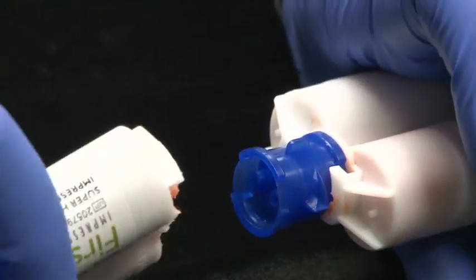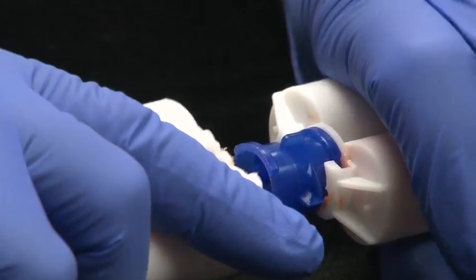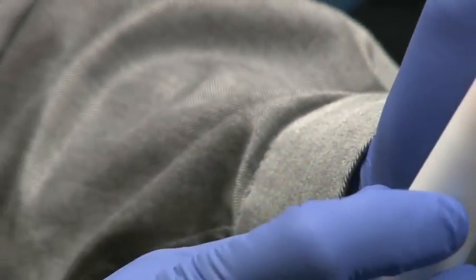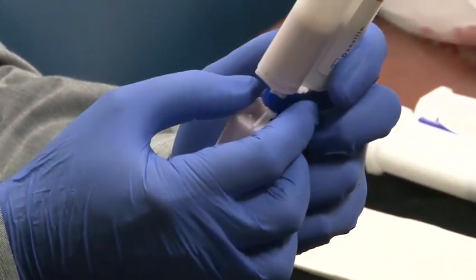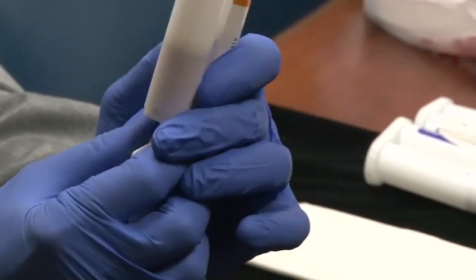We do the same thing, line up orange with orange and just go straight on. It should fit on very nicely. Now I'm just going to pull this up so I can get a little better handle on it. Can you see that?